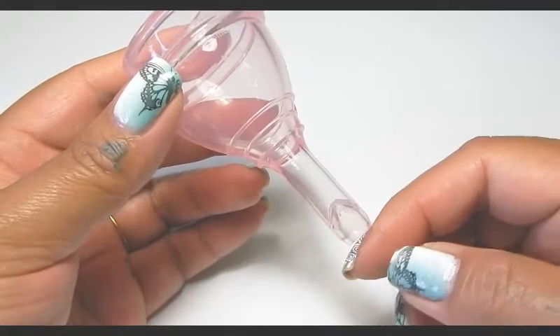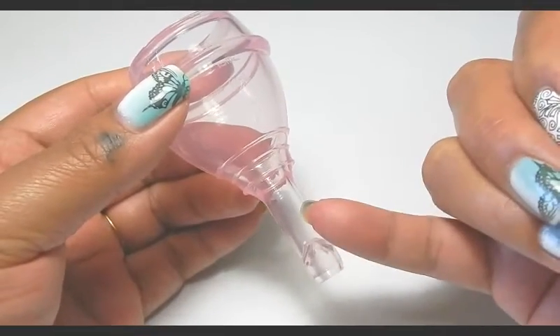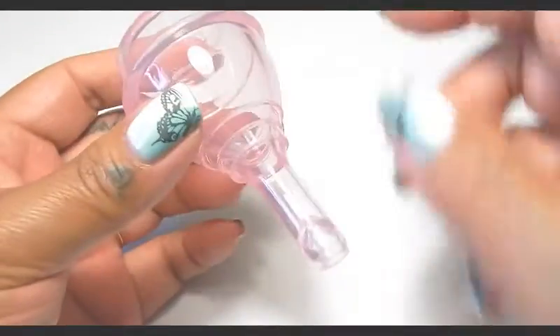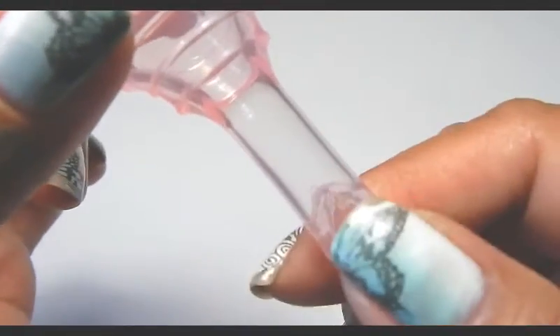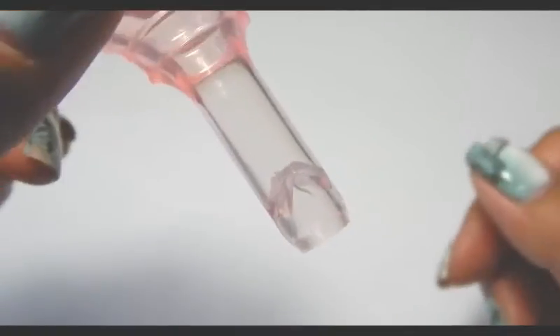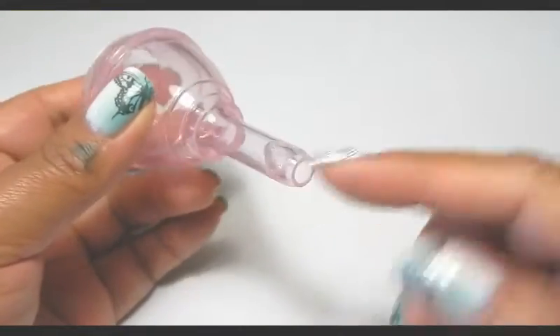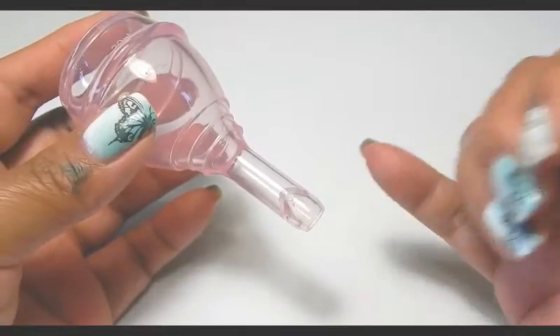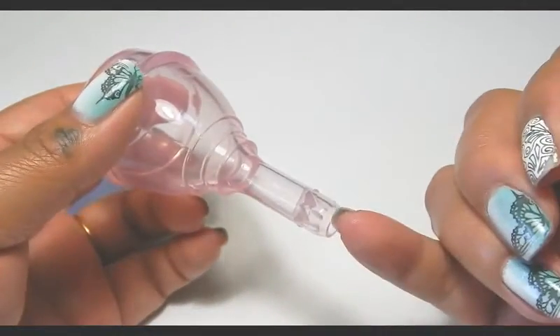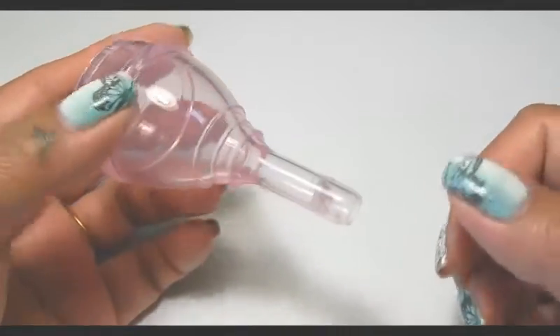When you're cleaning this out, I could get my pinky inside this area when there's soap — my finger just slides right in and I could rub all this area. Just be careful that you don't damage the teat part where it opens and releases, because if you damage that your blood will be able to drip through it. I would use maybe a dental brush or something. The same goes for the other side — there's resistance and it's a grippy silicone, so I have to put basically lube on it to clean that area.